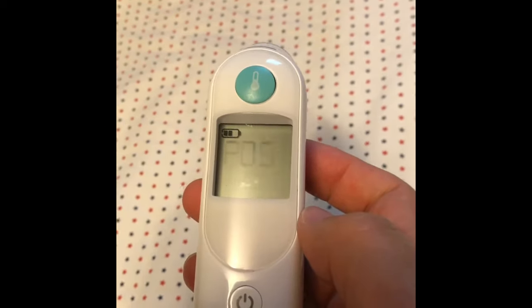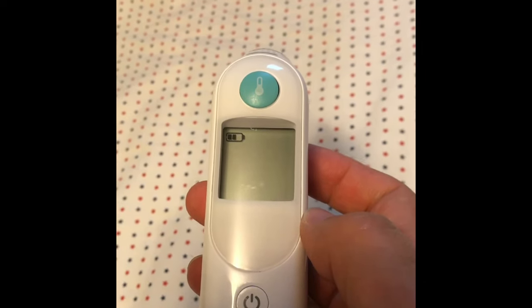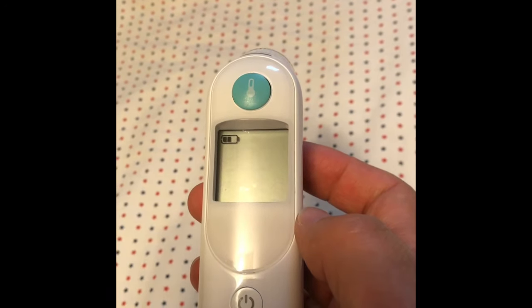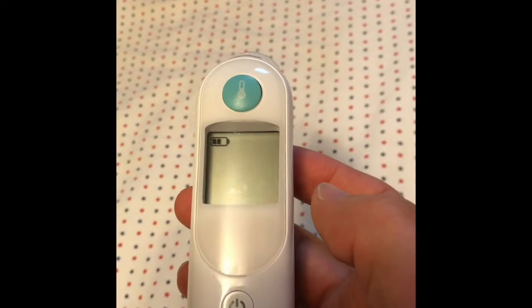Okay, after the beep it shows POS error — it means position error. It keeps on showing this message. I tried everything.